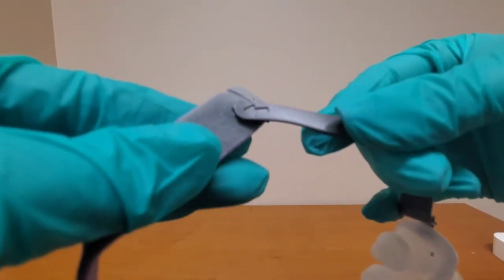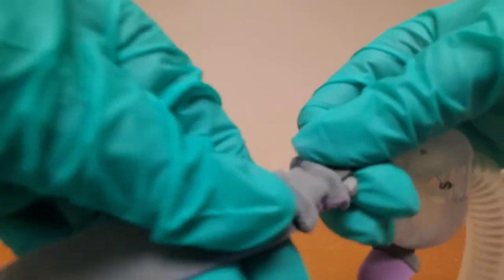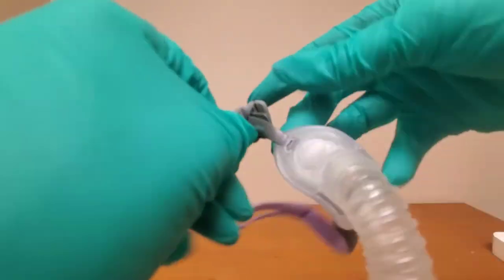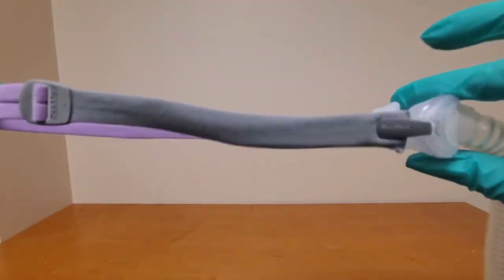You're going to just follow that arrow to slip it back in like a pillow in a pillowcase and you'll thread it back through and once you get a little excess built up you can bend that strap back and pull it past that little button again so that when you give it a tug it stays in place.